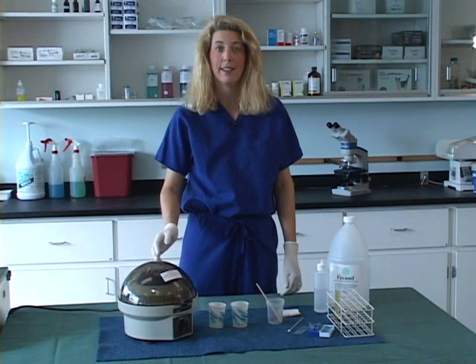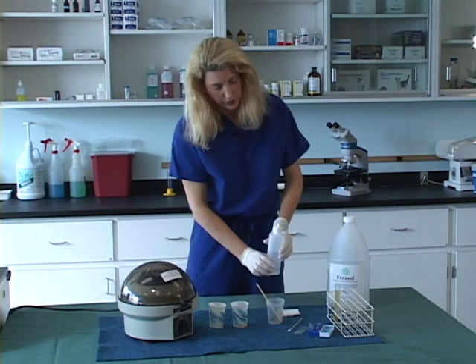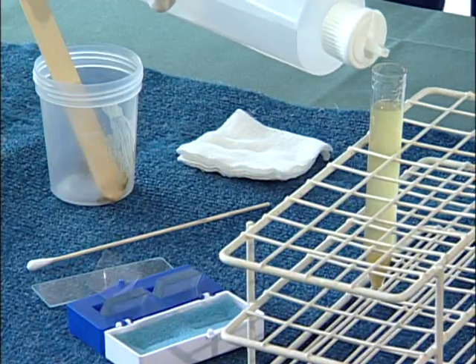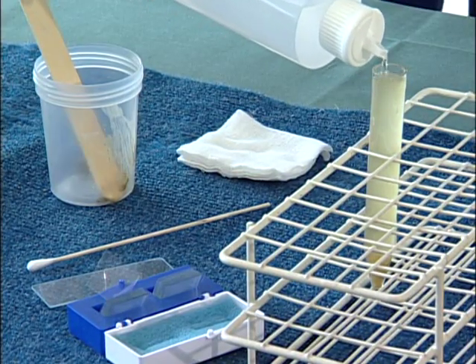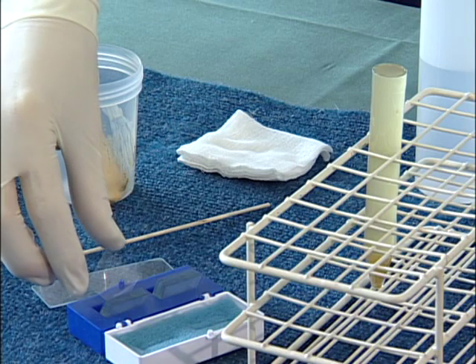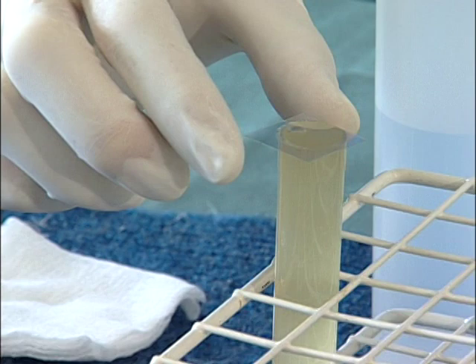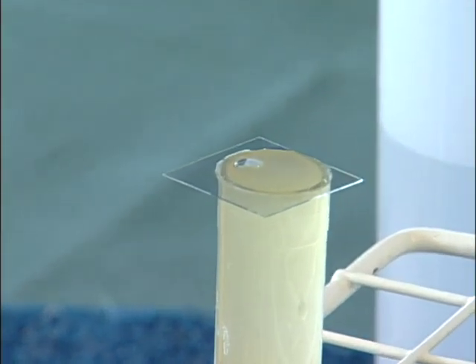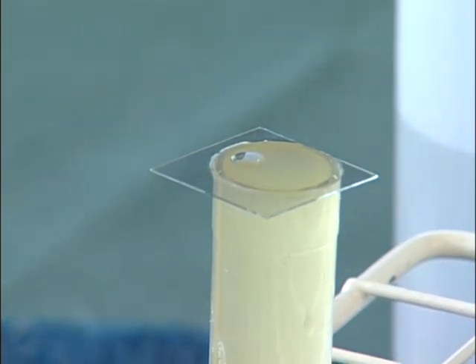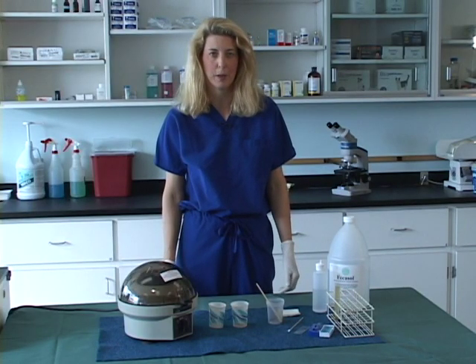If you have a swing head centrifuge or non-fixed head, take your original centrifuge tube with fecal solution in it, then add additional fecal solution to the tube until you create a meniscus. Take a cover slip and place it on the conical tube — you will notice that there is a bubble underneath the cover slip. That indicates there is surface tension there, and when you spin that tube in a swing head centrifuge, the surface tension will hold the cover slip in place.